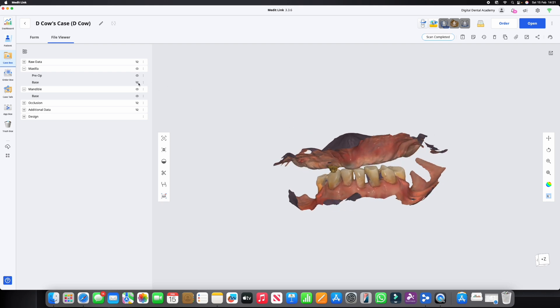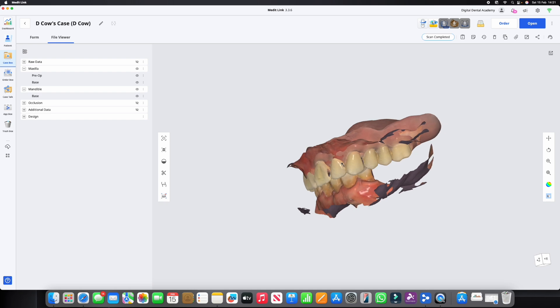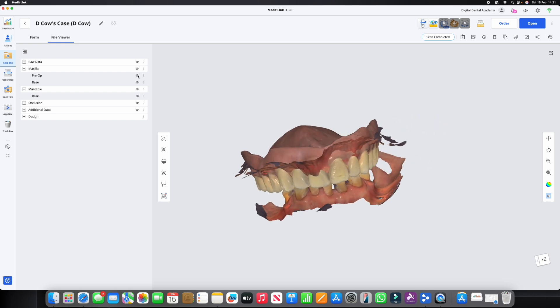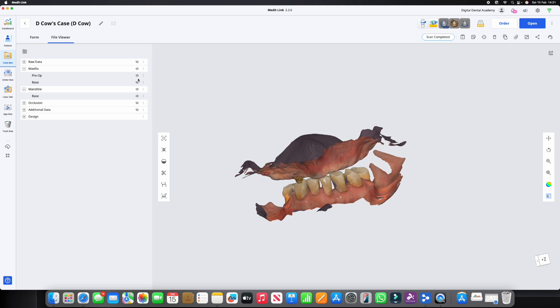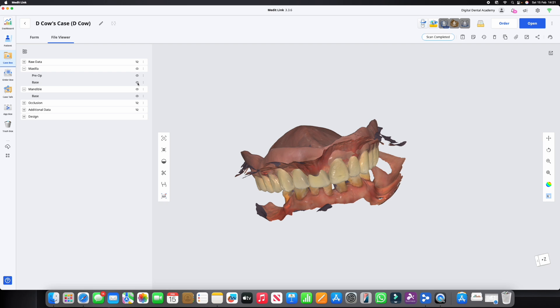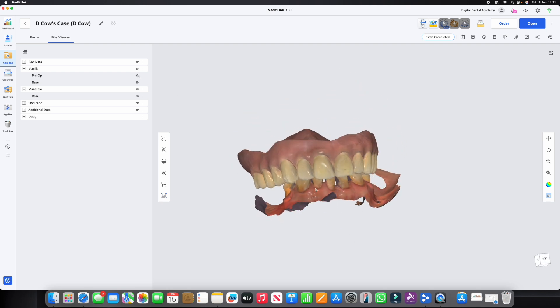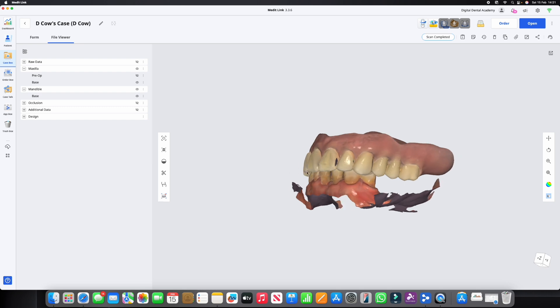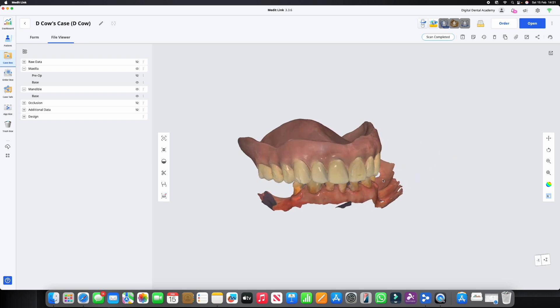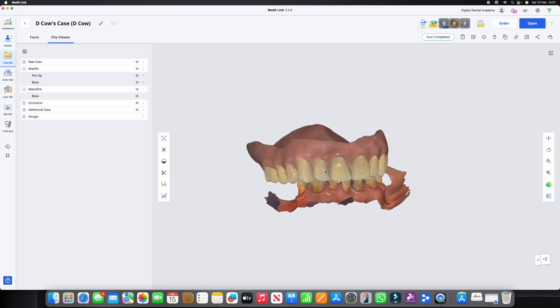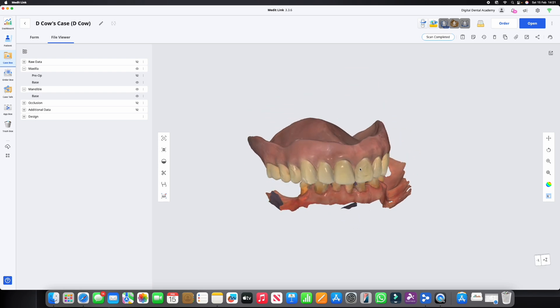If I turn that off, there we go. So there's just the prep there that was scanned for that, and we've got the denture base that is scanned with the bite so the occlusion is recorded with the denture in place. And the reason why we can do that, if we scan in this case, obviously this is an upper opposing a lower that's in transition.